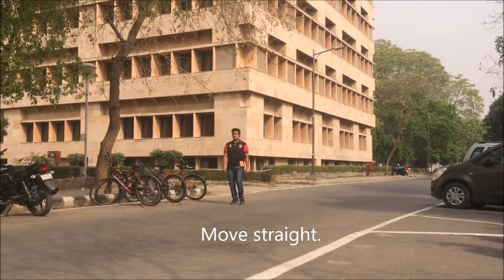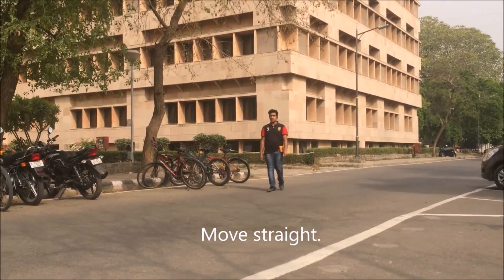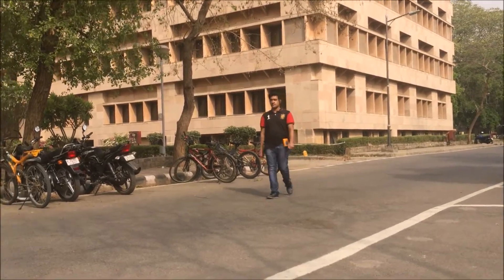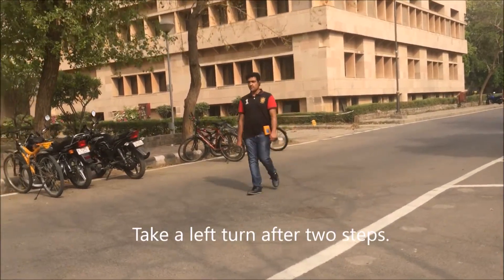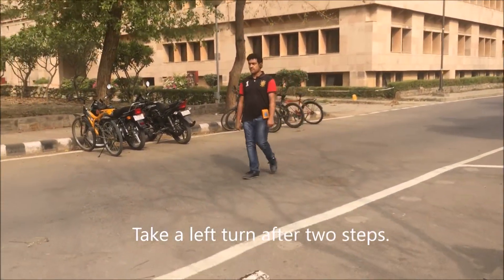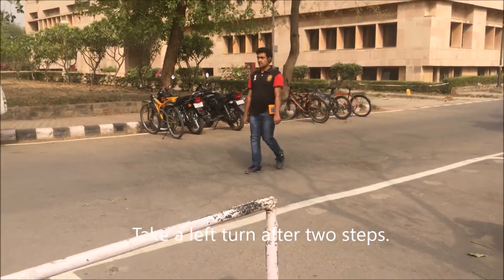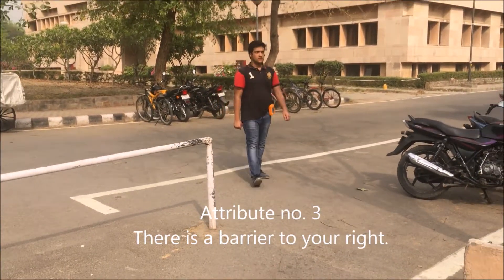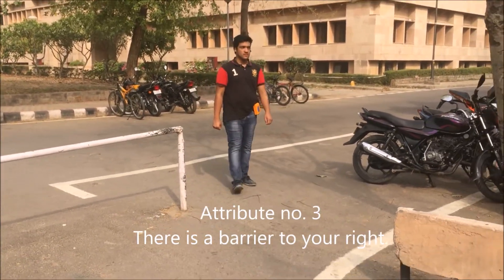Move straight. Take a left turn after two steps. There's a barrier to your right.